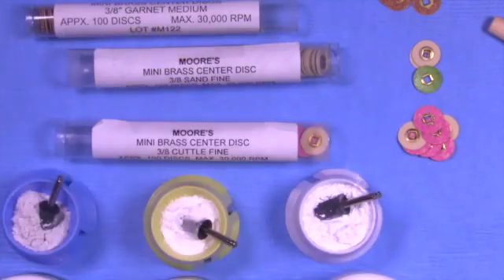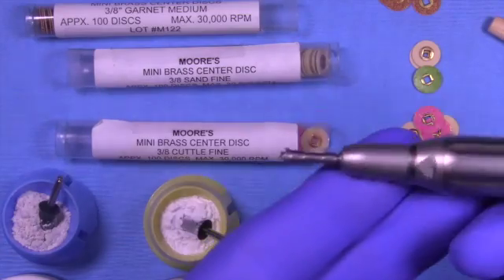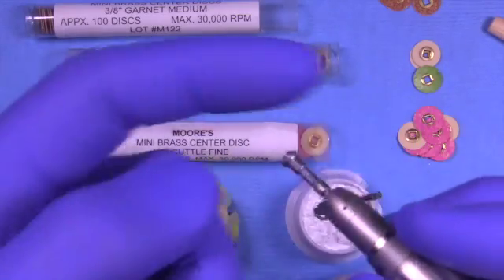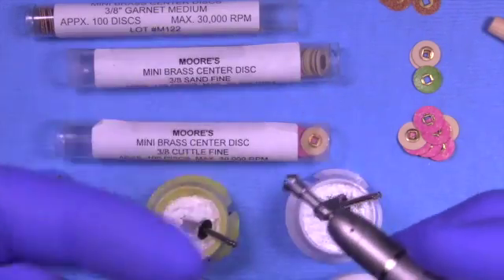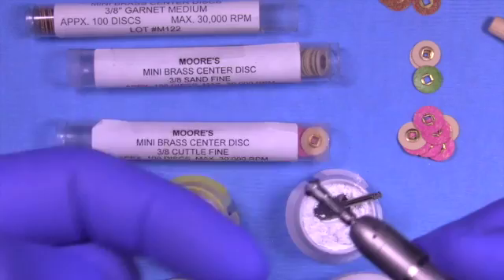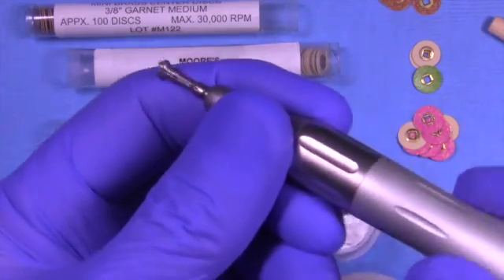You can use the disc in the straight handpiece for almost everything except for the mesial-lingual where you'd want to utilize the contra-angle. I'm going to show you that during the cementation video which is following this armamentaria video.